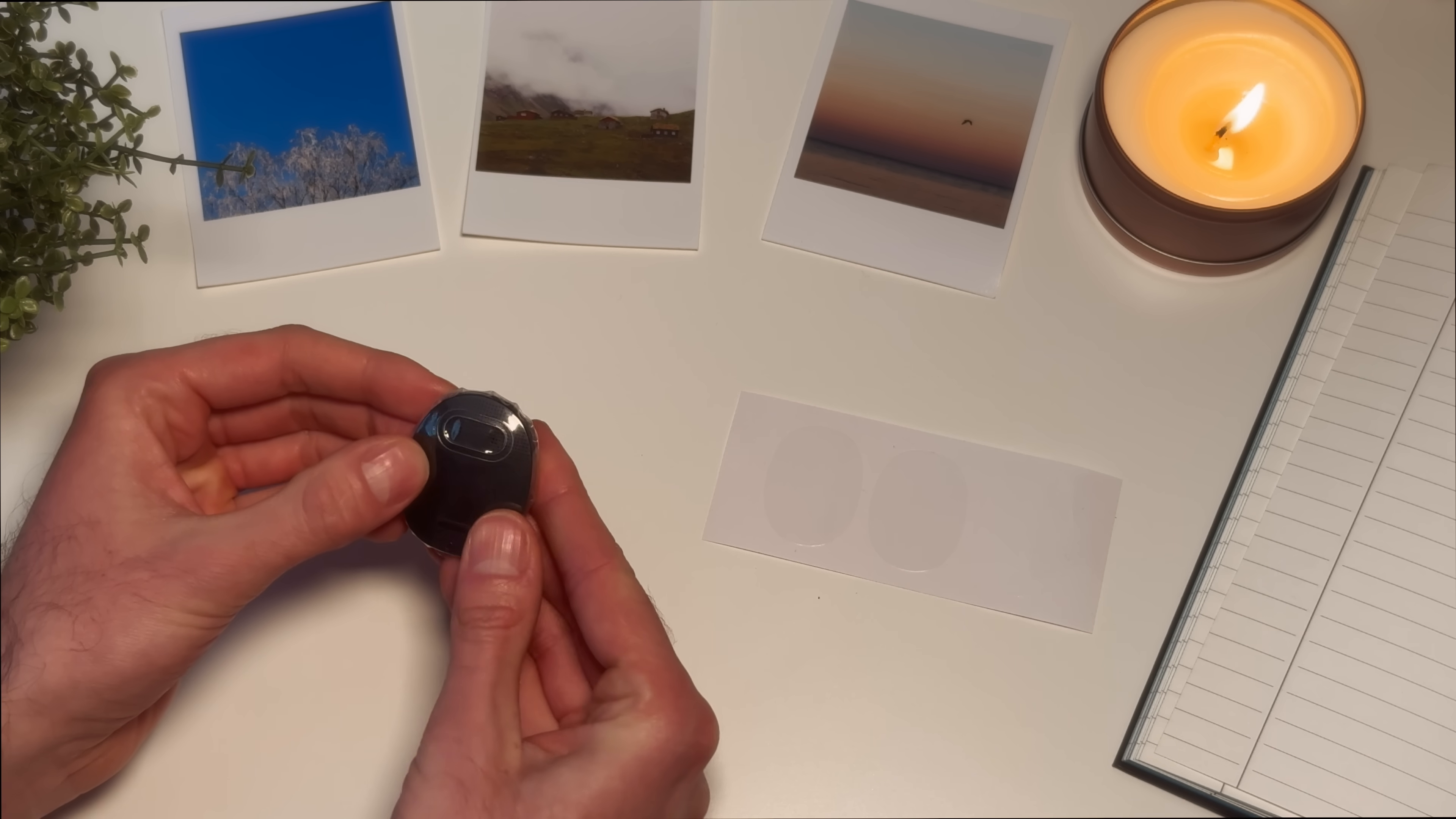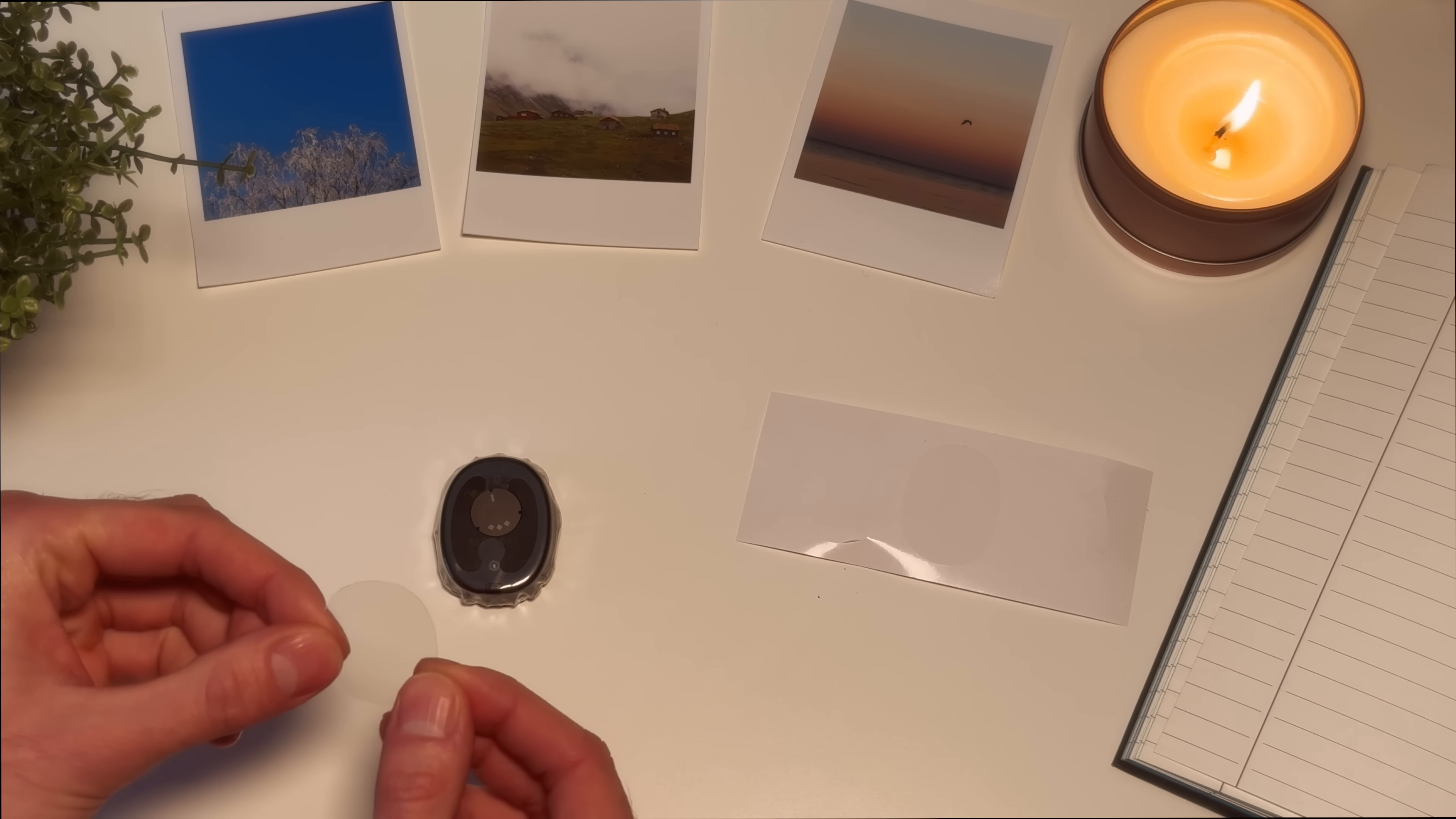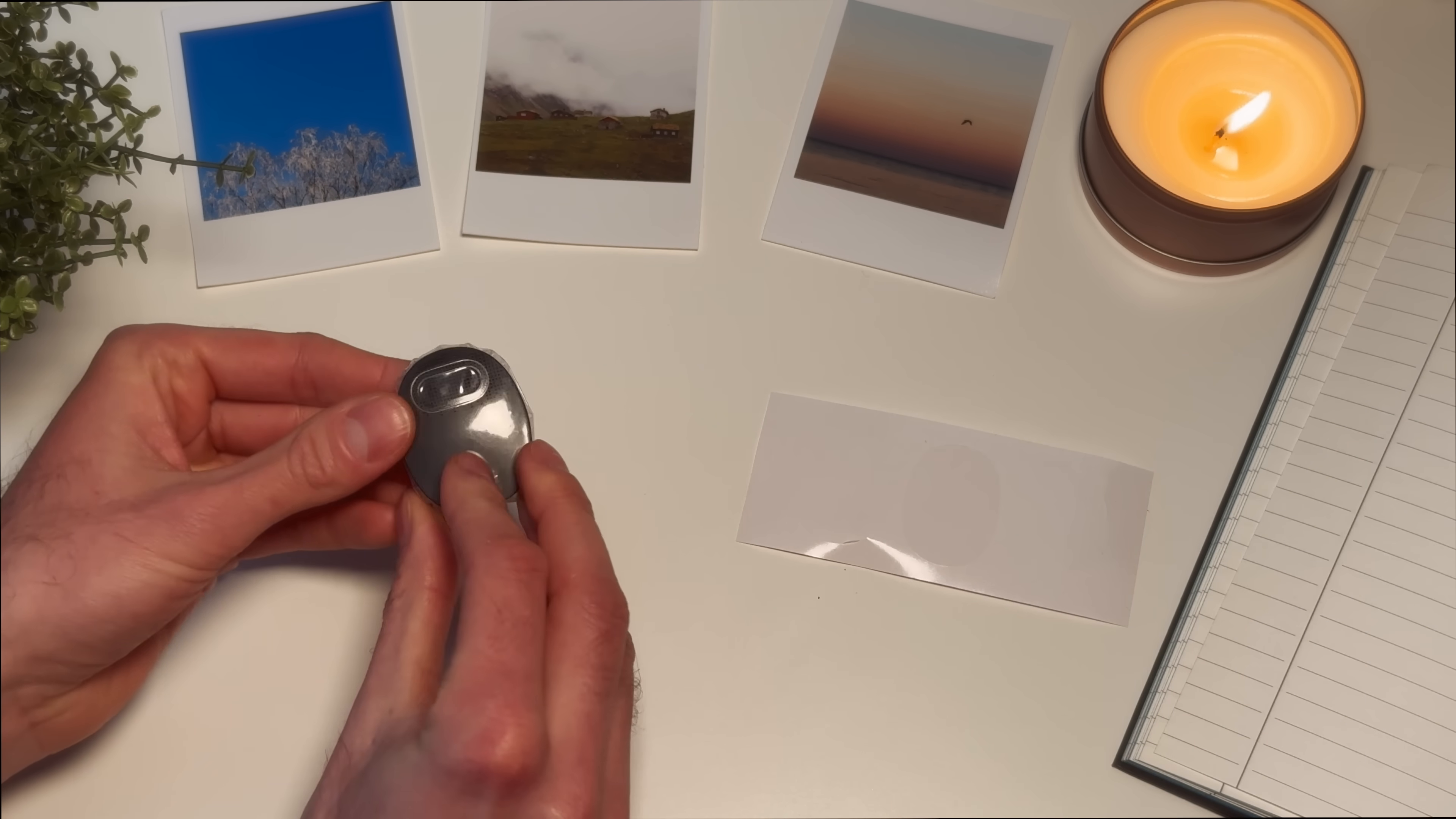Make sure the cover fits snugly around the processor without any wrinkles or air bubbles. Place the round adhesive strip over the flat side of the processor starting at the circular flap. There should be no gaps between the strip and the cover. Now you are ready to go swimming with your Rondo 3 audio processor. Check this out!